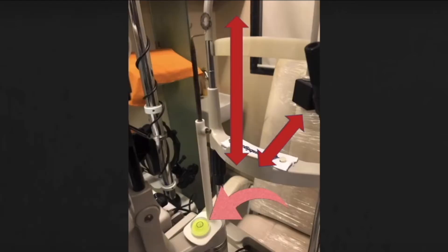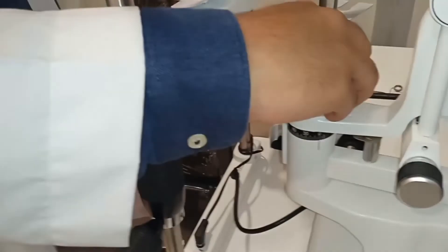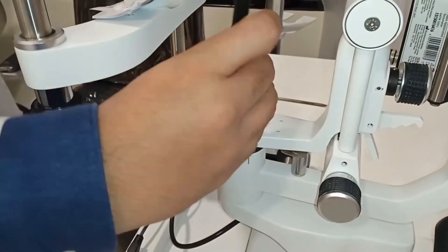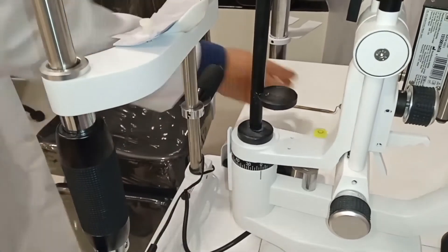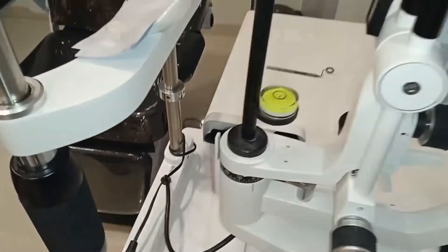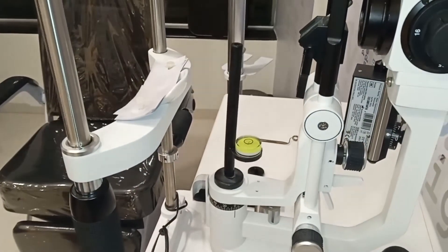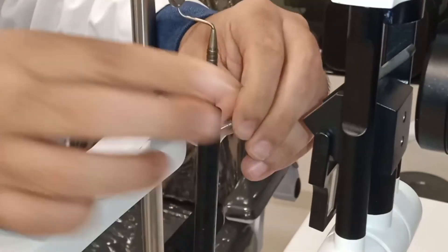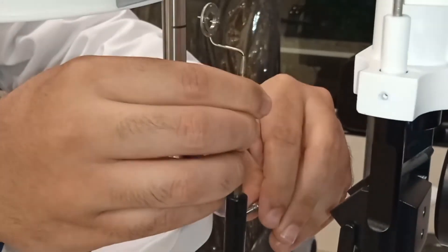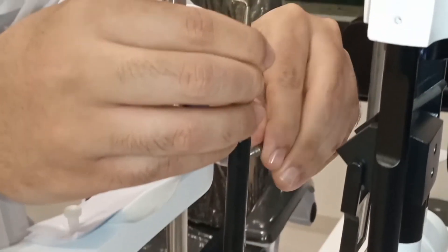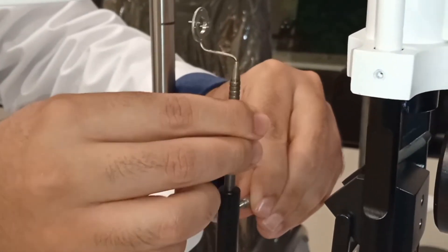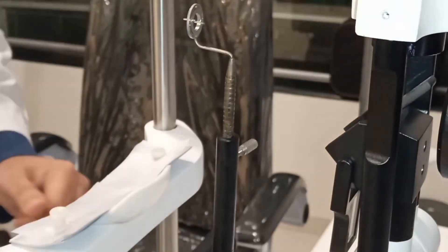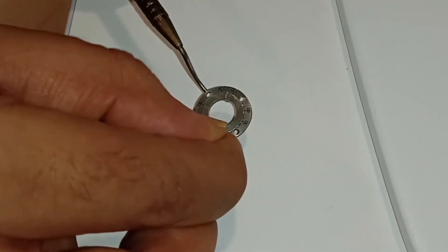Thus giving you a final demonstration. As you can see in the video, we open the calibration slot, implant the toric marker into the calibration slot. Then with the help of the knob, the toric marker dial along with the shaft is put into the adapter, and using the knob we can then take the shaft up and down. As seen here, the dial is 360 degrees rotatable.